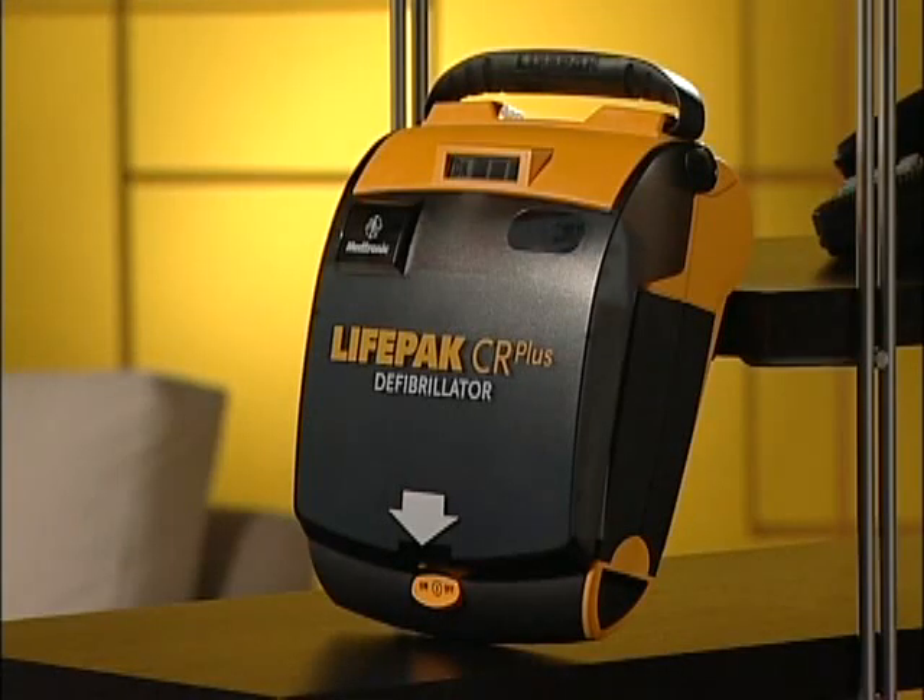You might watch this demonstration a few times to understand as clearly as you can. You should also read all of the material that came with your LifePak AED and get CPR training. When someone collapses, you want to be able to act quickly and without panic. The LifePak AED is designed to be very easy to use — it will actually tell you what to do at every step. Your AED is shipped to you ready to use; no additional setup is necessary.